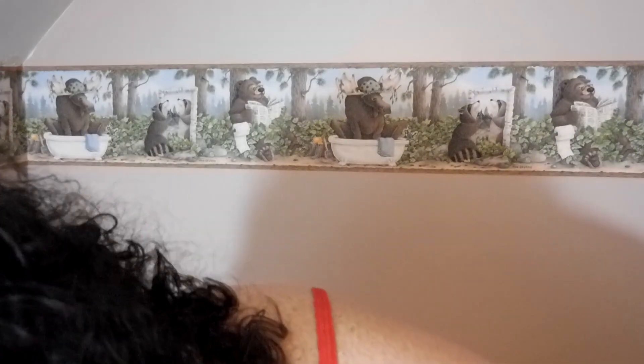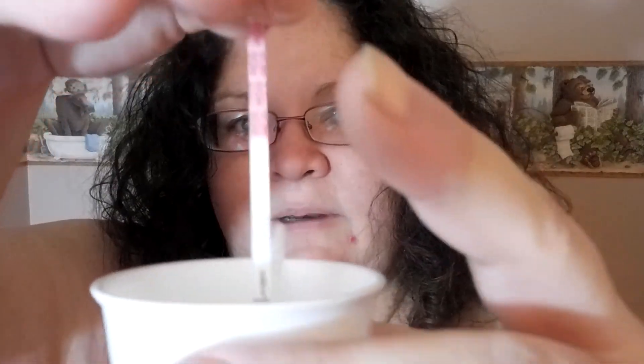Dipping a replacement strip for a count of seven. I'm going to dip the defective one just to see what happens. The cotton is what leads it up to the dye, which is right underneath there. There's no capillary action because it's not pulling from the cotton — it's literally just a garbage test. Something is actually moving across though — that's bizarre, I didn't think it would work at all. Setting this aside for now.